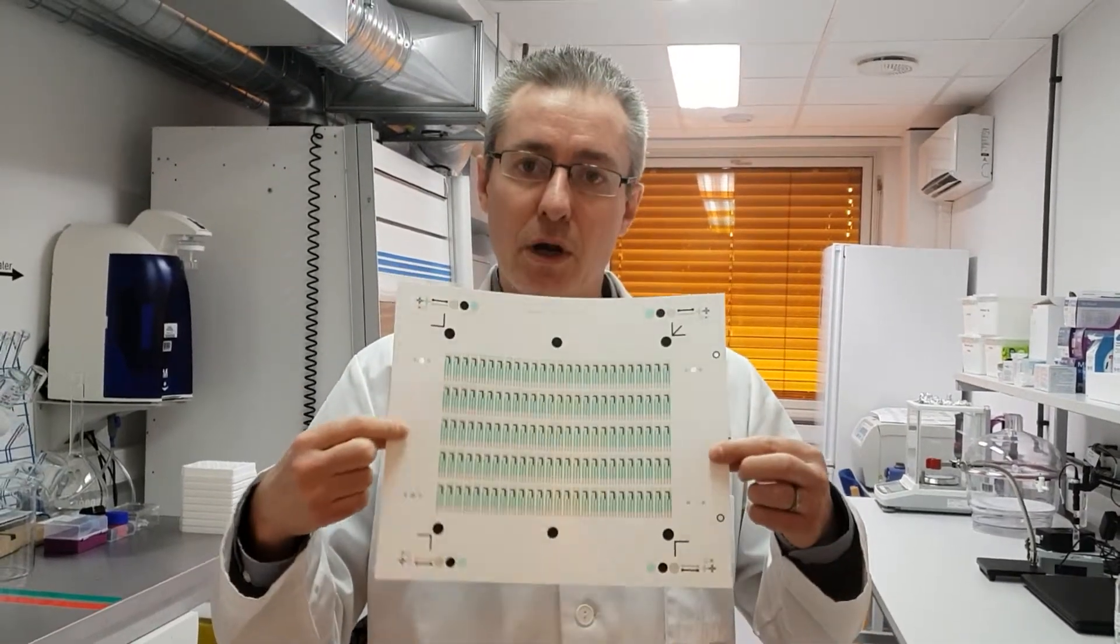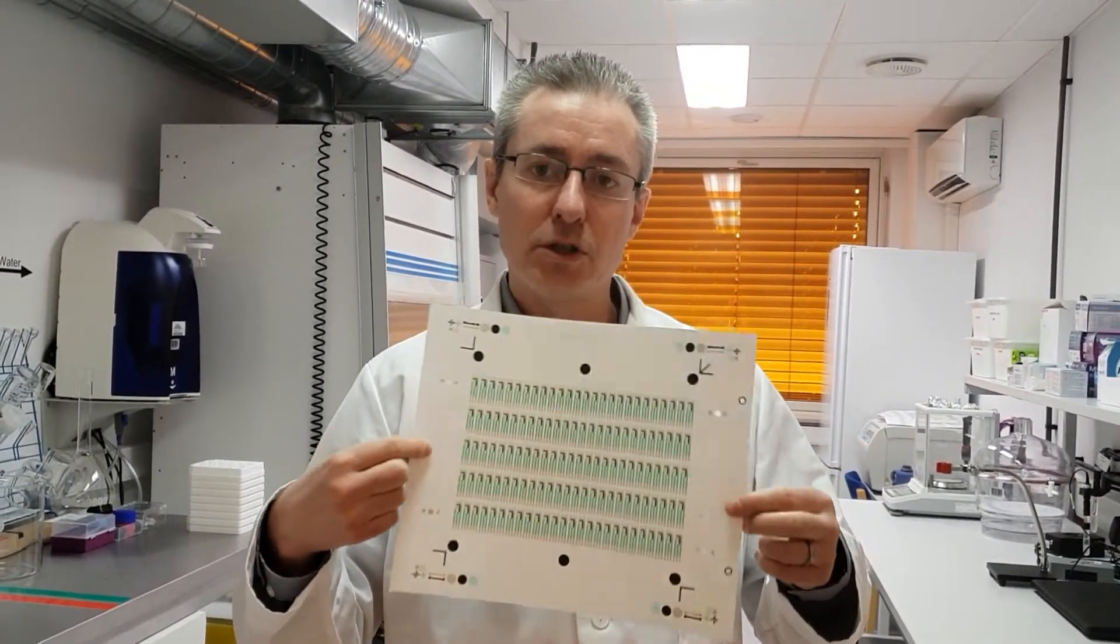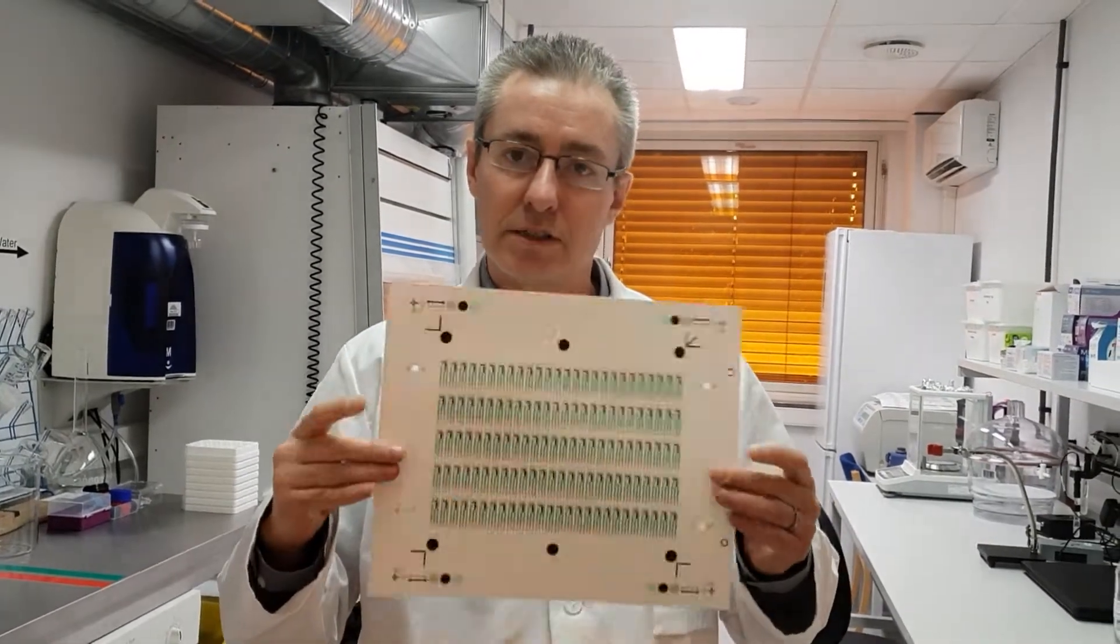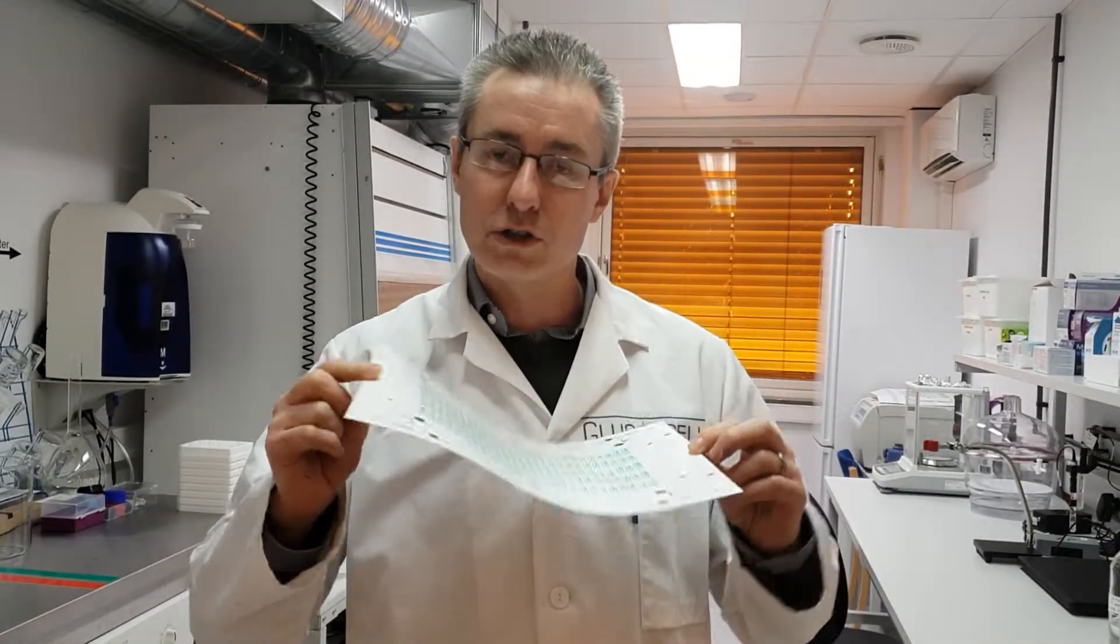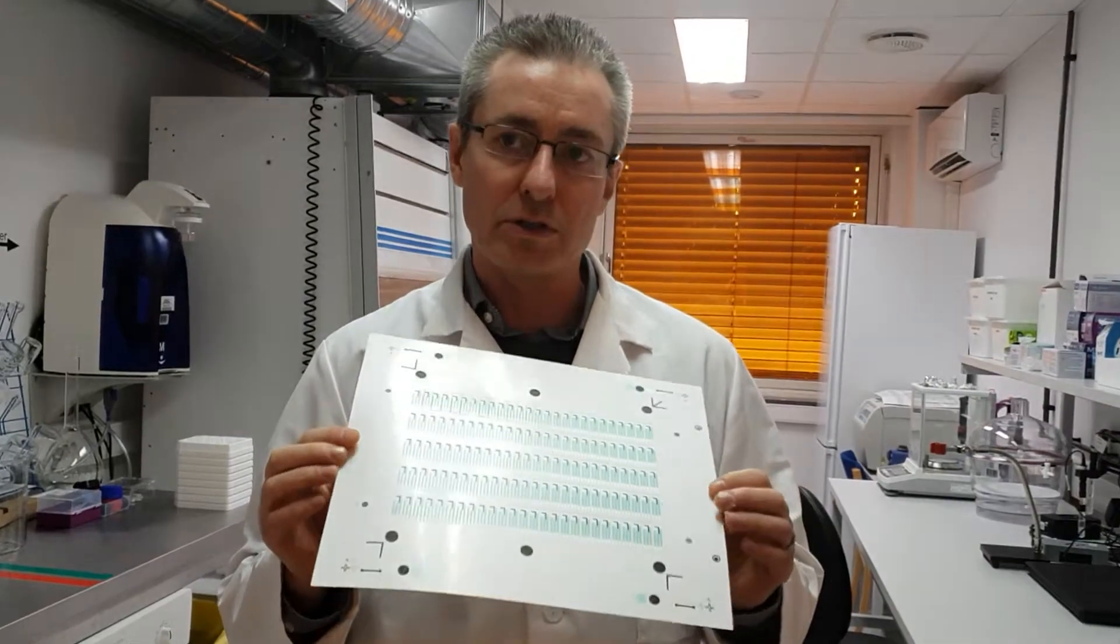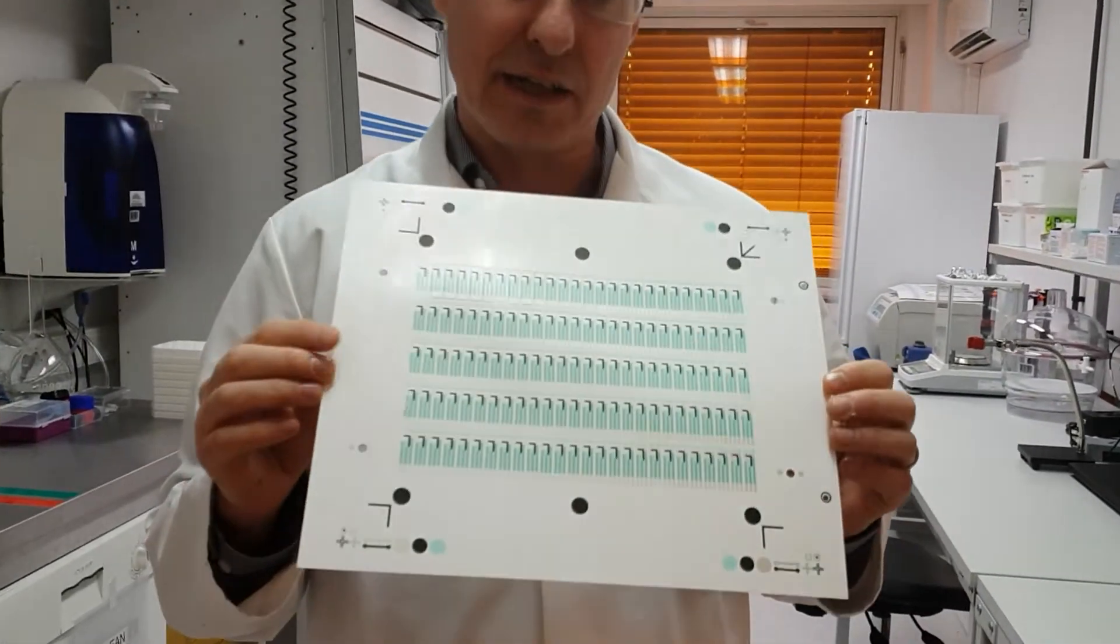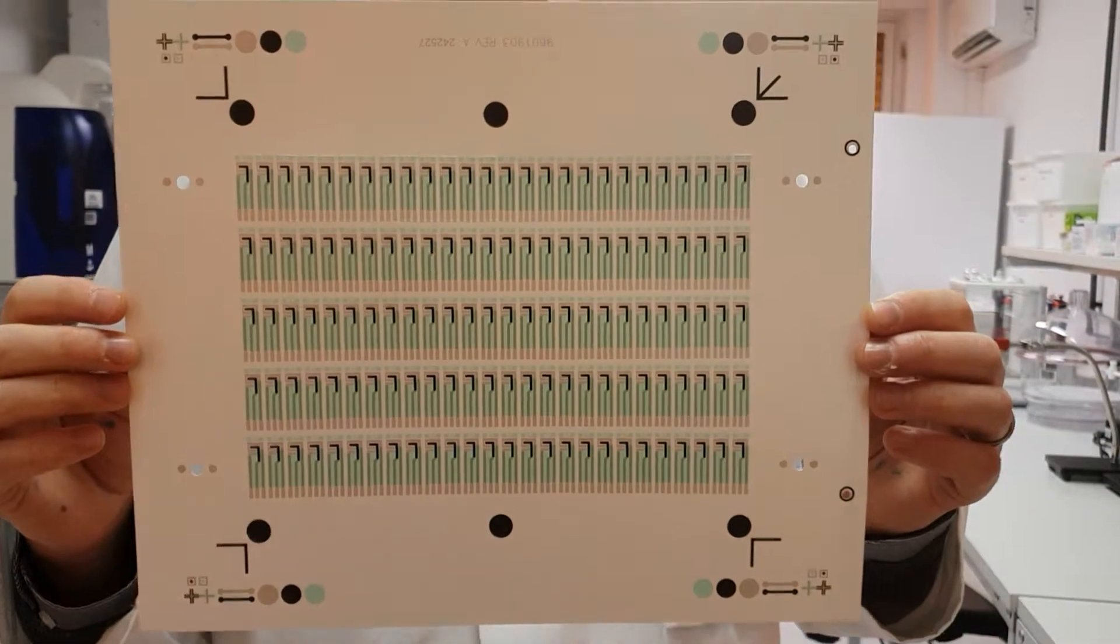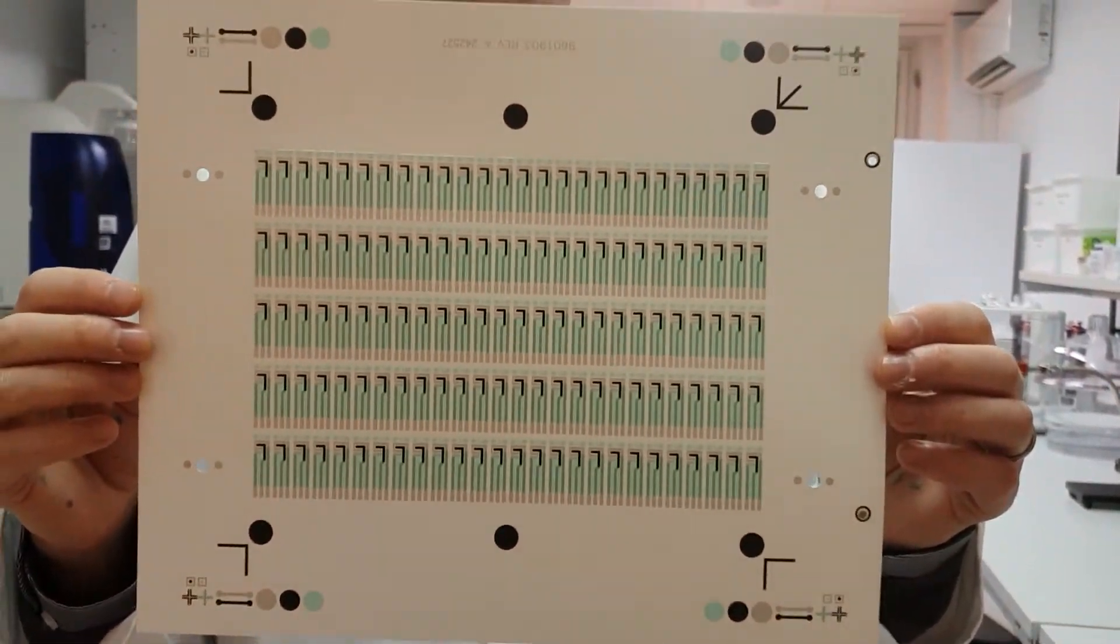We're now producing some lower cost electrodes that are particularly useful for medical diagnostics, and we're producing them on sheets. If you're familiar with glucose sensors, that's exactly that kind of technology. On here I've got about 130 screen printed electrodes in carbon.